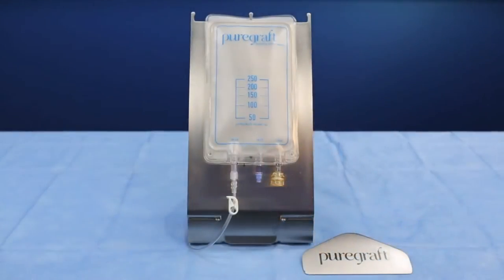For optimal performance, use the PureGraft 250 system in conjunction with the PureGraft easel and slider.